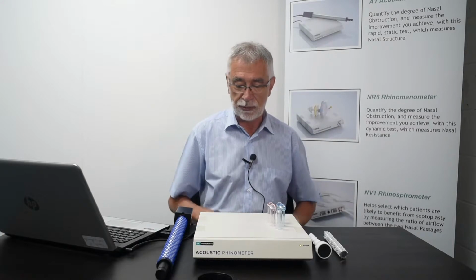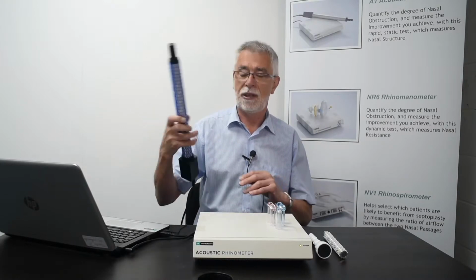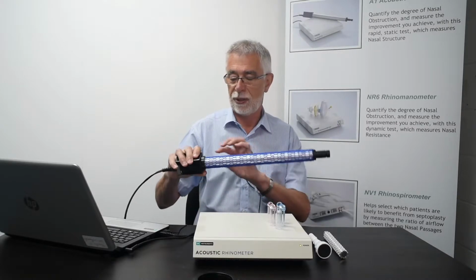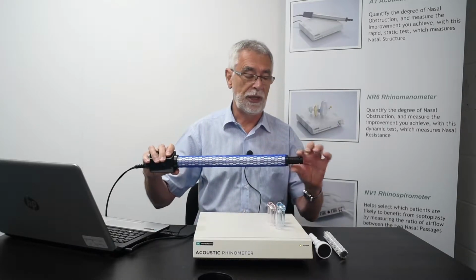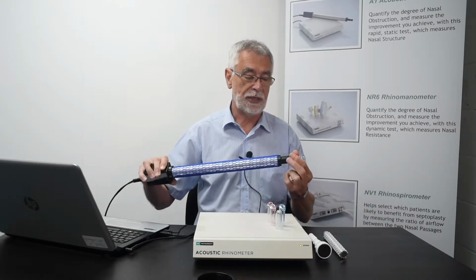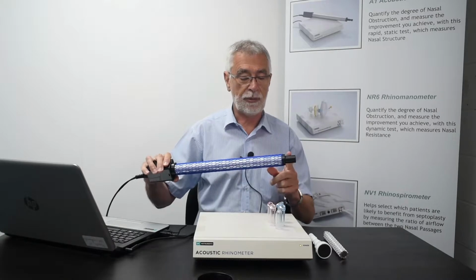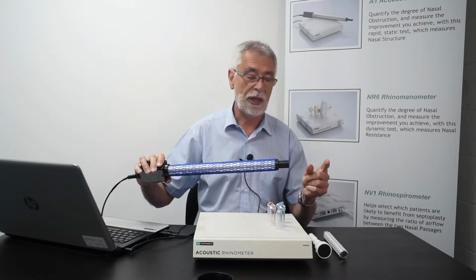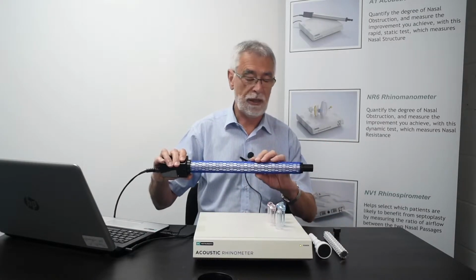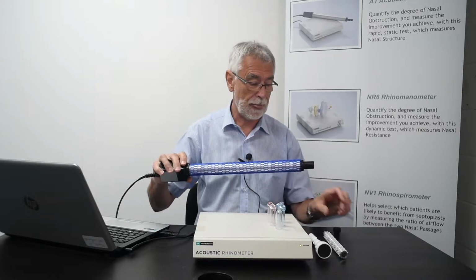The acoustic rhinometer itself comprises the transducer box, which I have in front of me here, and a sound tube. The system operates by generating a click sound at the black box here, which travels up an internal tube, past the microphone, and exits the sound tube at the end here through a nose piece, and that is normally applied to the nose when we're making measurements. As the sound travels up the tube and past the microphone and then into the nose, anywhere where there's a change in cross-sectional area produces a reflection back down the sound tube again, which we process in order to give a plot of cross-sectional area as a function of distance.